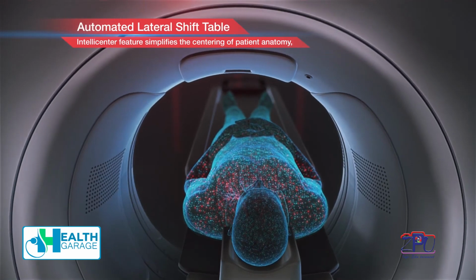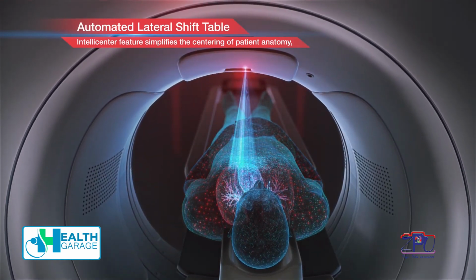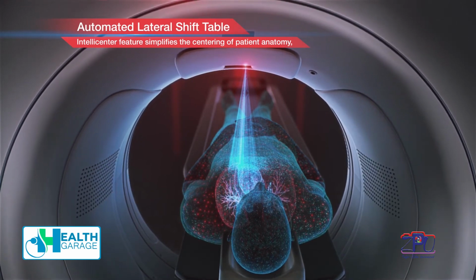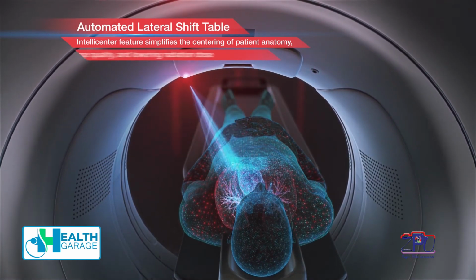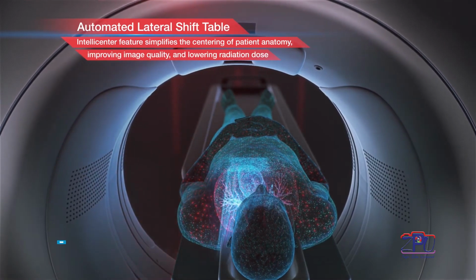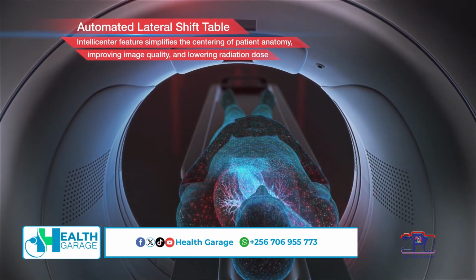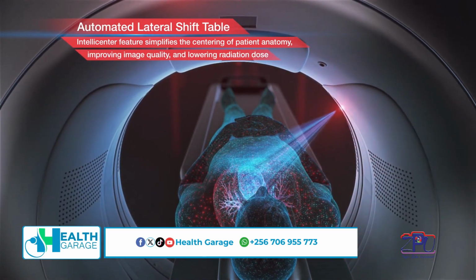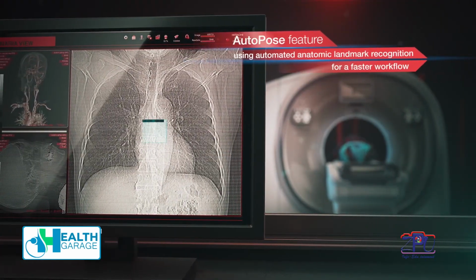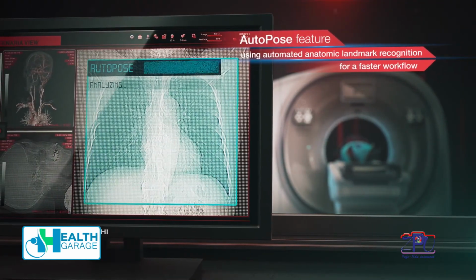CT scan can create images of different body parts from the head to the toe. It has applications that create images for the head, the neck, the chest, the abdomen, the pelvic cavity, and all the extremities. And within these body parts, we can do numerous CT investigations.